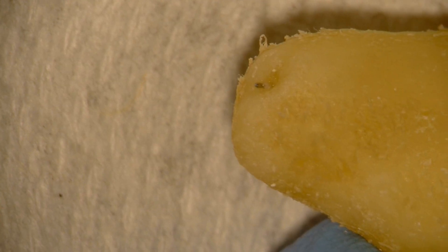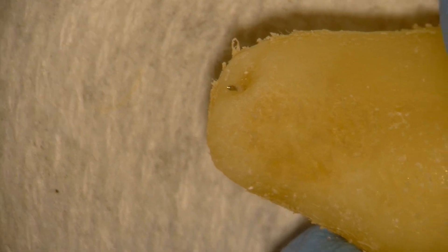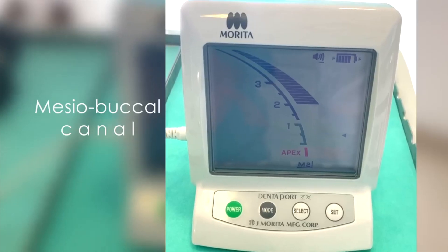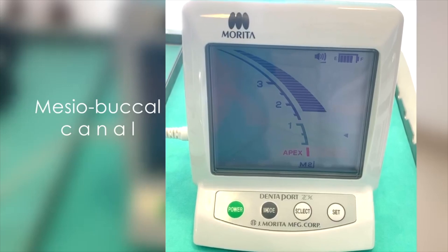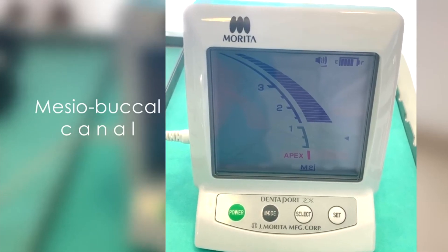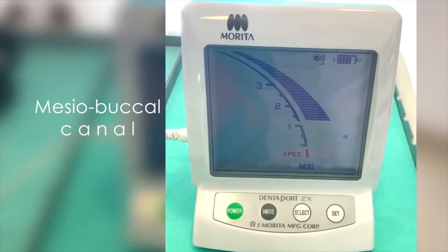Hey, Ash here from Lawthings Dentistry. Have you ever wondered what your file looks like at the end of a root at certain positions on the apex locator? This is a continuation of two videos where we're investigating what and where our files are at different measurements on an apex locator.